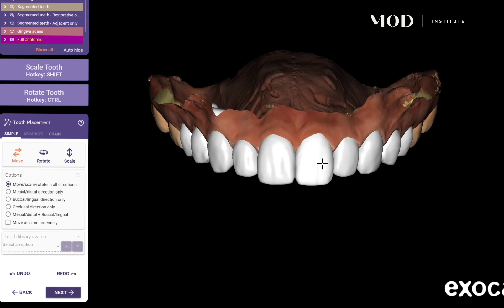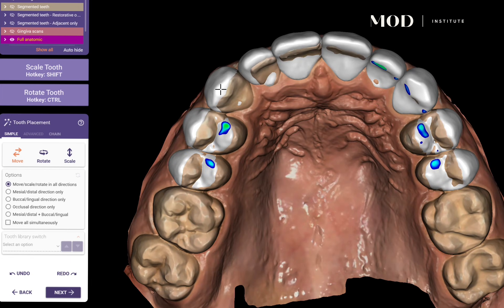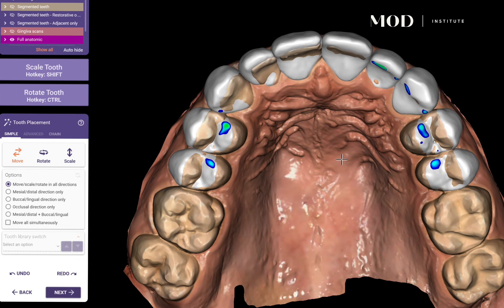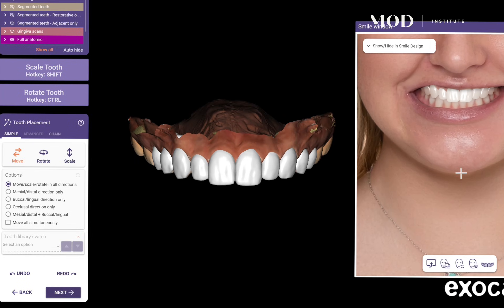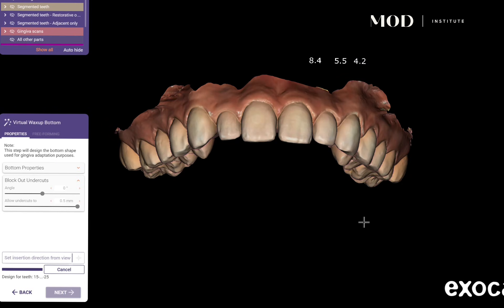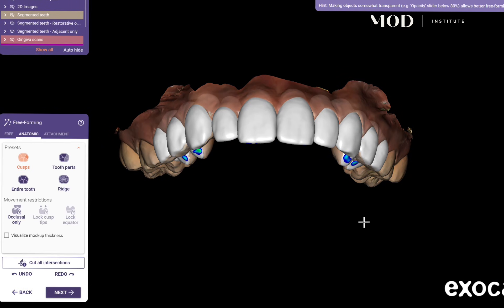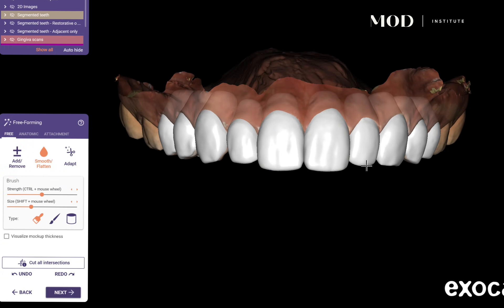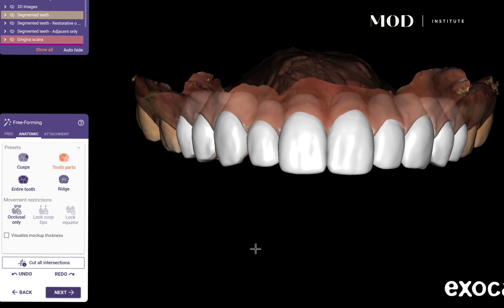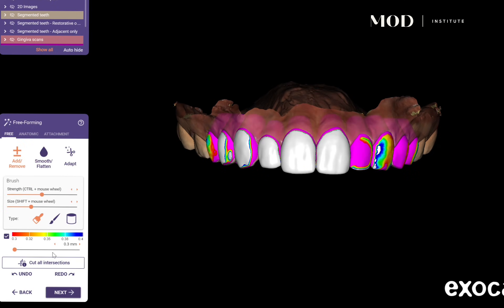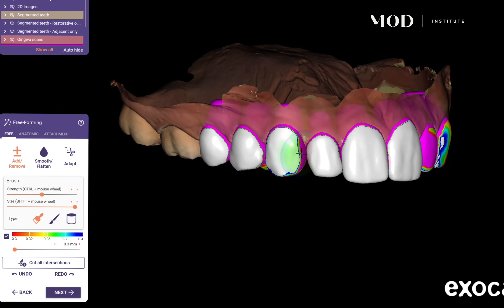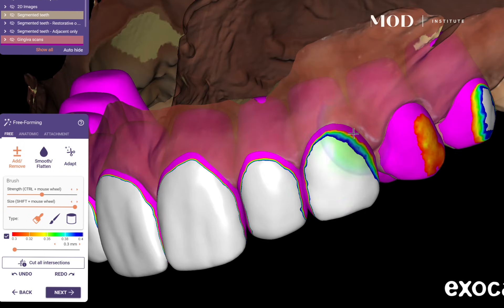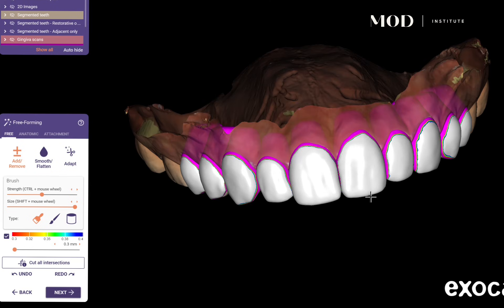With the added advantage of being able to manipulate these — and once you have wax on the facial surfaces using the patient's natural shapes — I'm just filling in any little diastemas I see and bringing in the patient's photographs for the augmented reality view. I'm picking teeth to do some fine sculpting and visualizing my material thickness, making sure I'm at about 300 microns — anywhere that's pink probably will not print, so I'm boosting the thickness to right at 300 microns to print these predictably.